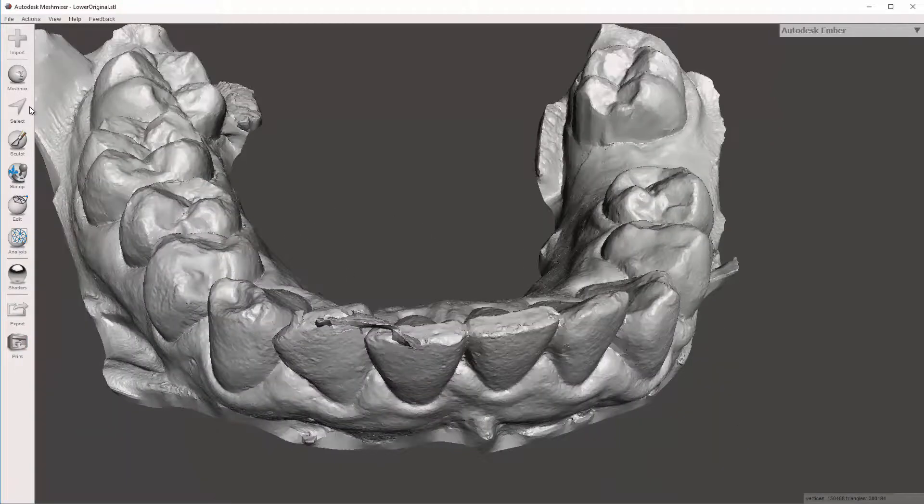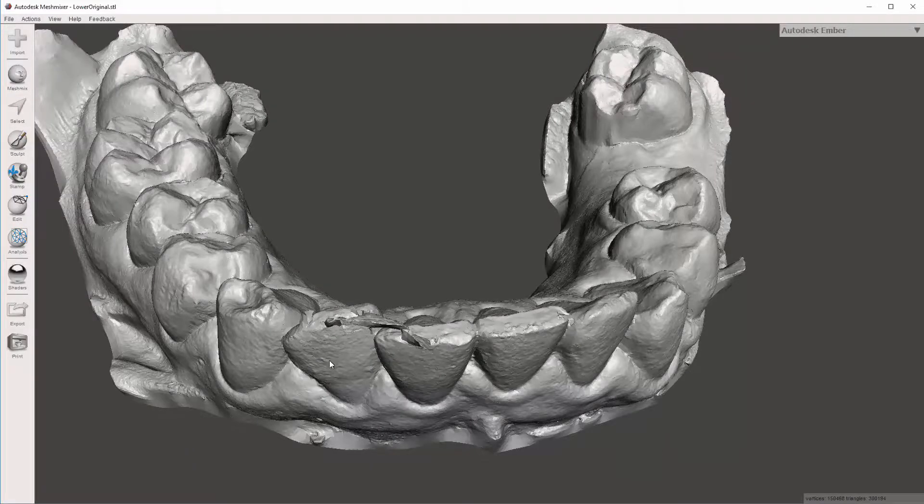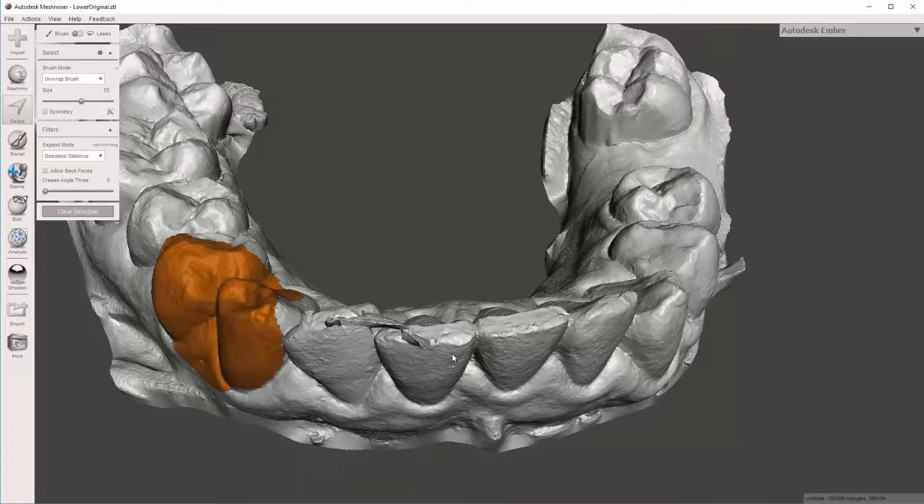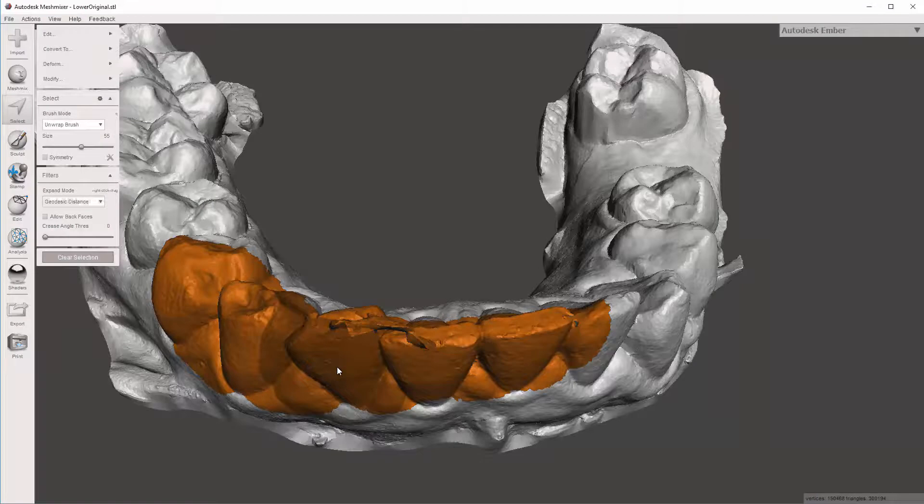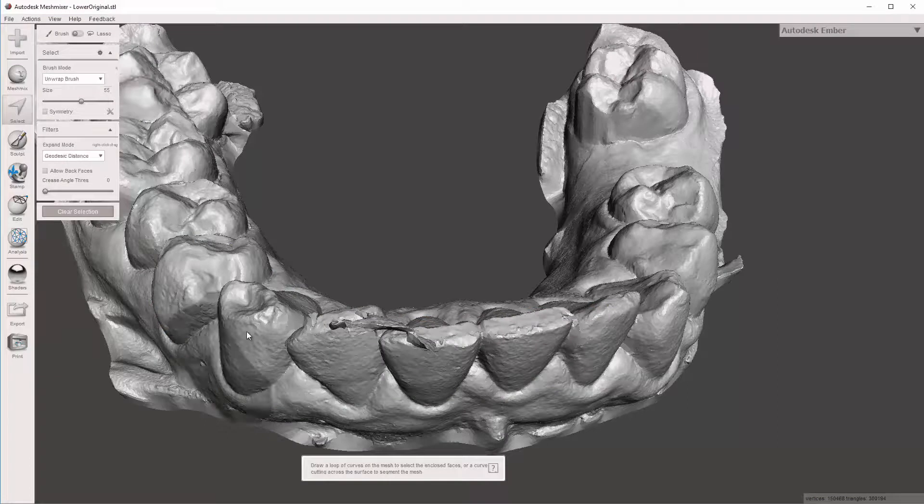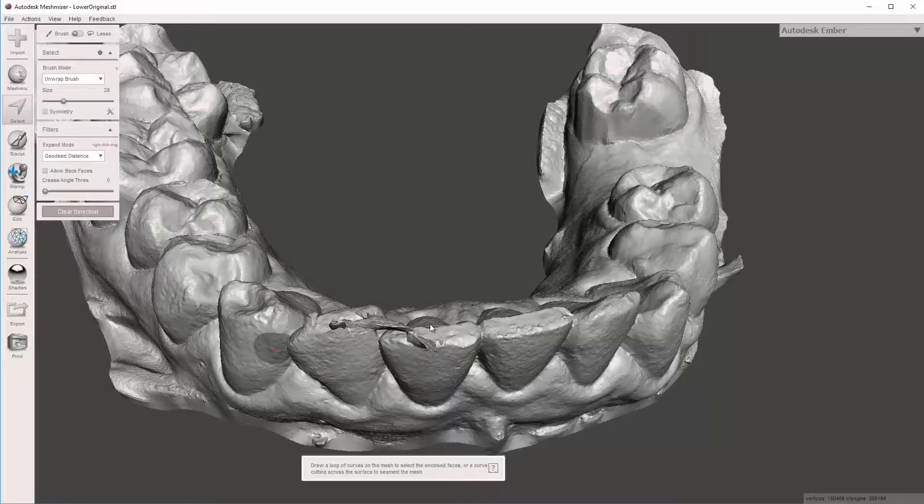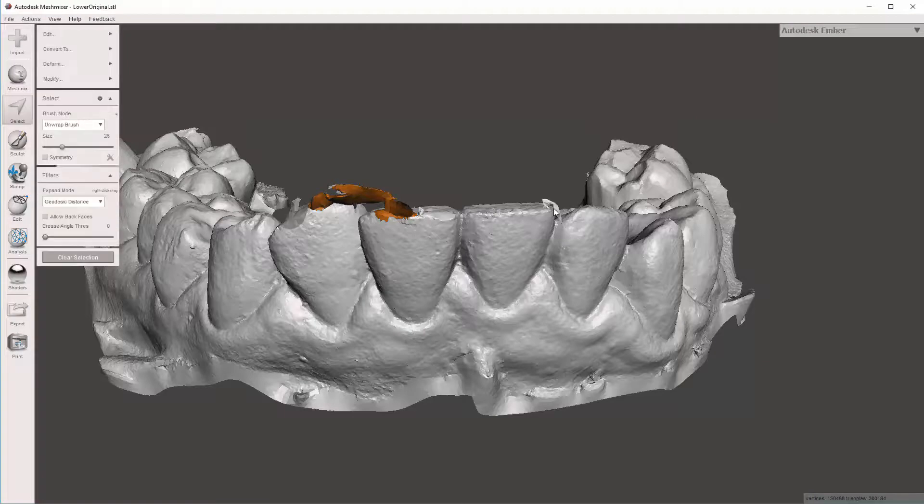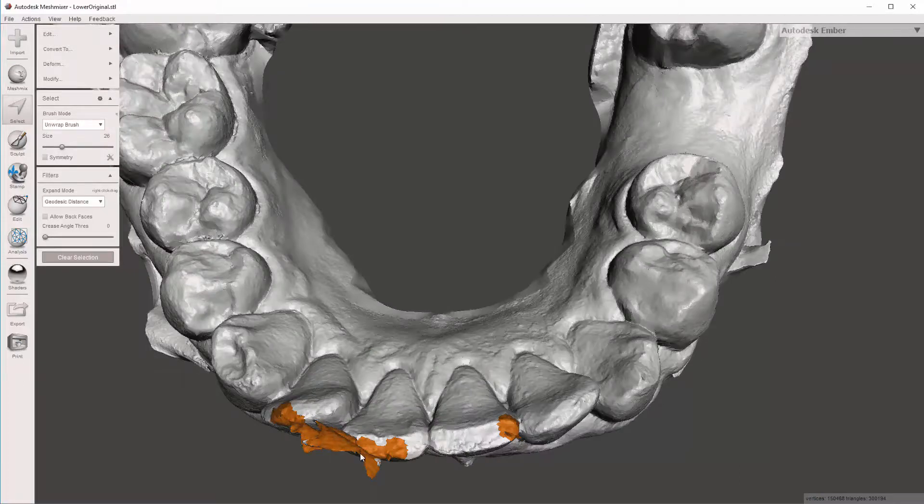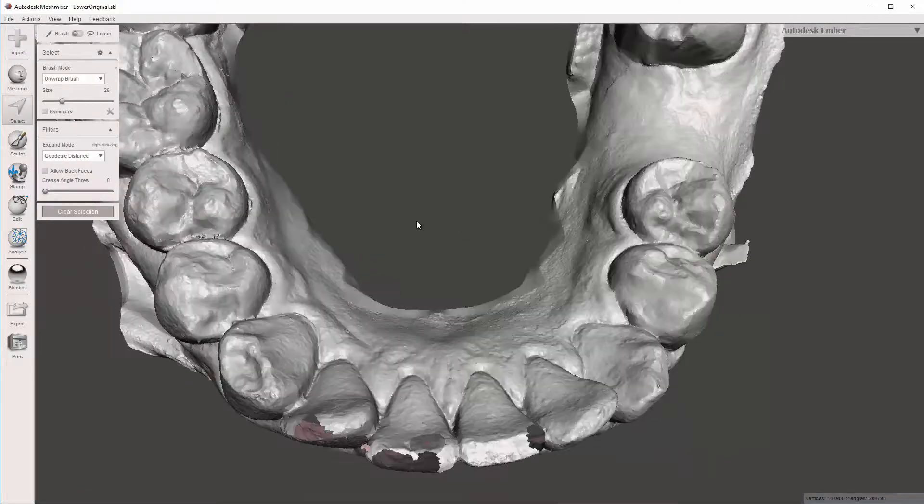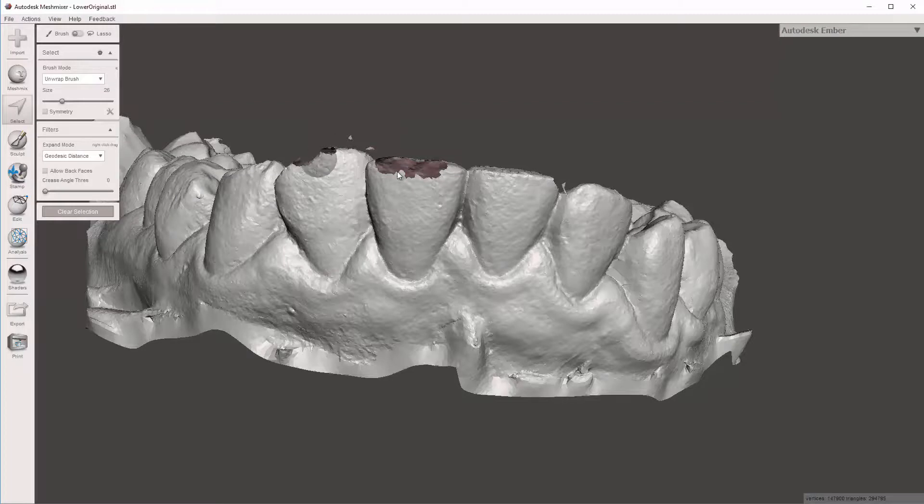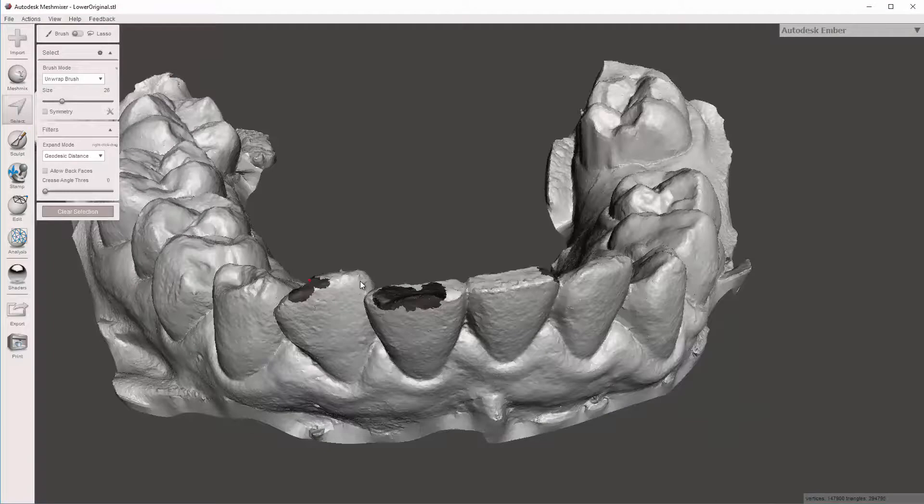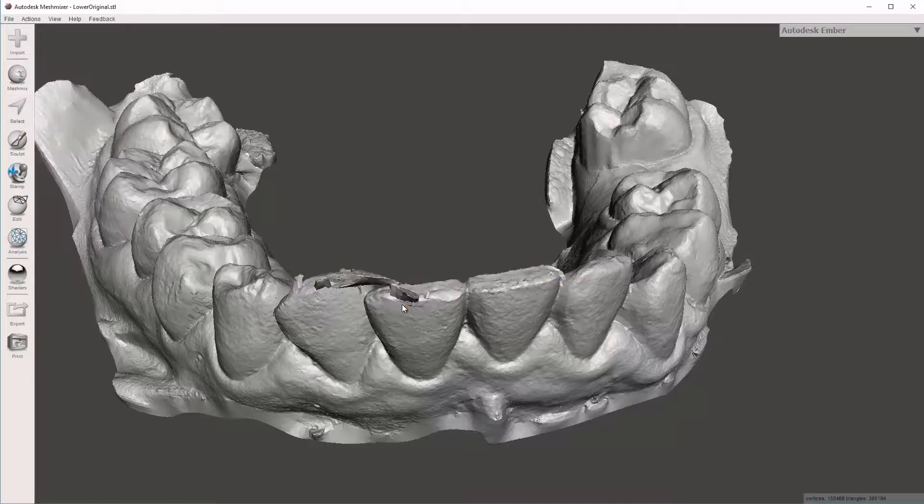There's a few different ways to do that. We have our select tool up here. You can also just press the S button. If I press S, it gives me this area. This is the highlightable area I'm selecting, I'm highlighting. So that is one of the ways to find this area. If I hit Escape, hit S again, up here there's a little size slide bar, or if I use the bracket buttons, I can make it bigger and smaller. So I'm going to make it small, and one of the ways to do this is to simply highlight the whole part that's defective, and find these little blebs, and highlight them. And then make sure you've got it all highlighted, and then once you're there, you can hit Delete. So now you get these holes, and we can fill these holes in. The problem is, on a space like this, you actually want this cusp to be filled out. And the software doesn't really know where, so you can sometimes run into errors with that. So I don't necessarily recommend that approach, at least not the way I just did it. So I'm going to hit Control-Z to undo that deletion, hit Escape.